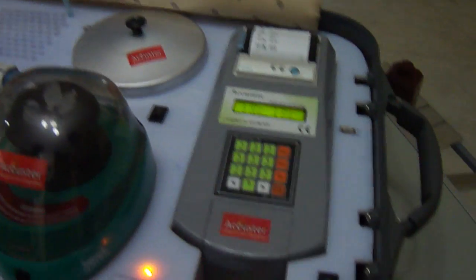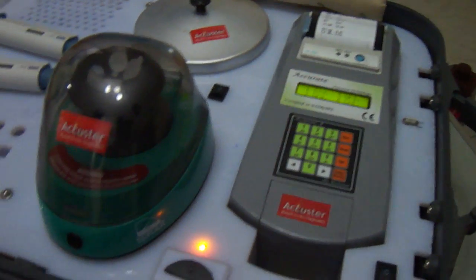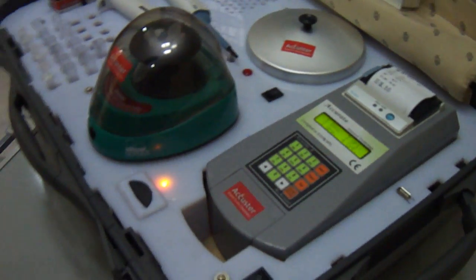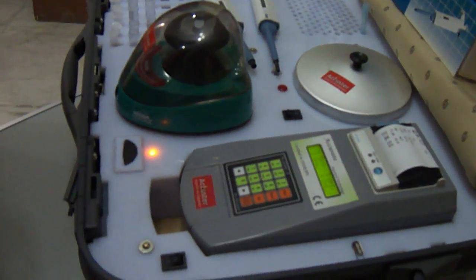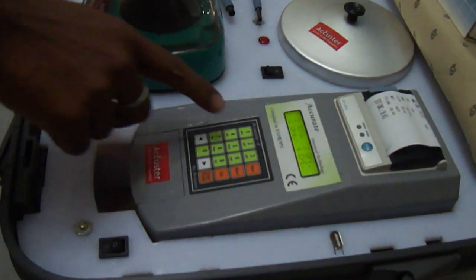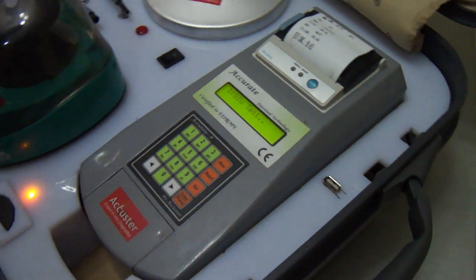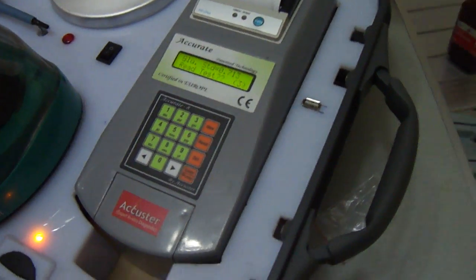You can now perform the test like this. This is very easy to use. Only two steps are needed to perform a test. For glucose, you just need to press one. Now you are in the glucose test and ready to perform.